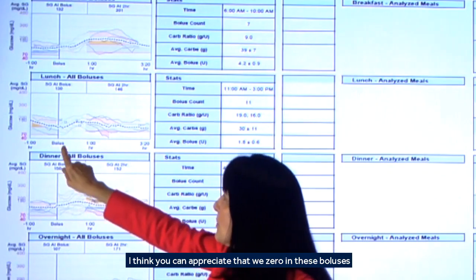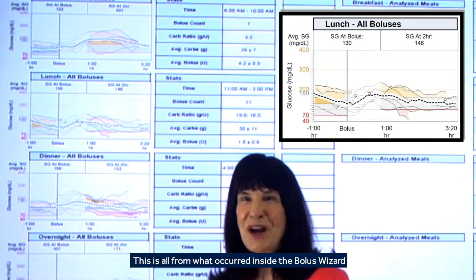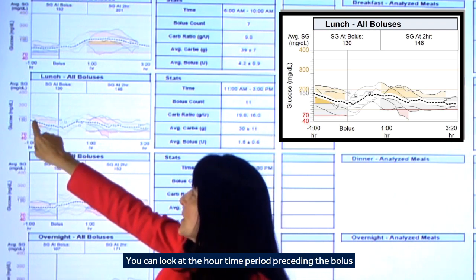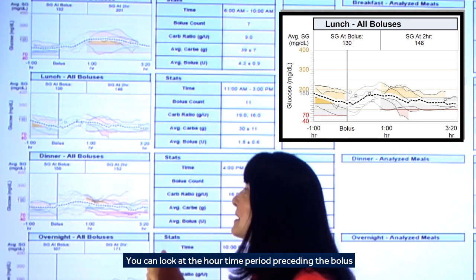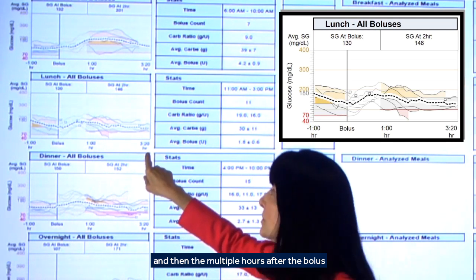I think you can appreciate that we zero in these boluses. This is all from what's occurred inside the bolus wizard. You can look at the hour time period preceding the bolus and then the multiple hours after the bolus.